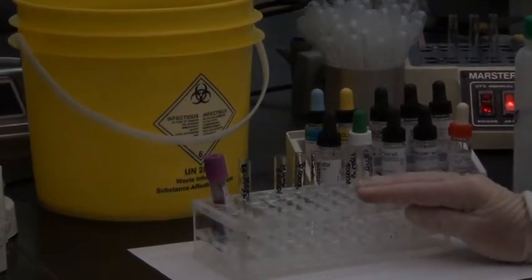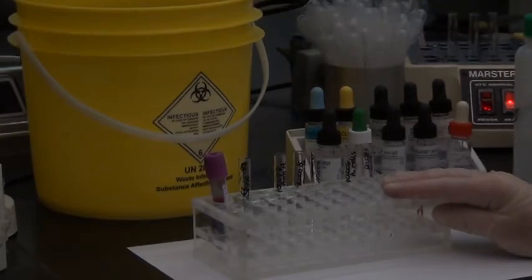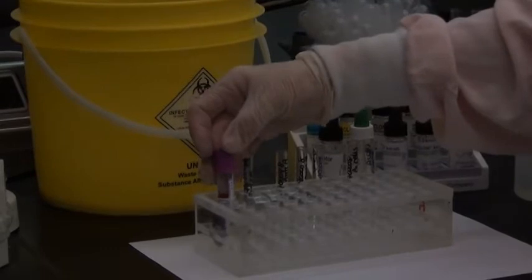We're going to do an ABO and RH type on our patient sample today. So what I have set up here, I've got my EDTA sample on my patient. It's already been spun.